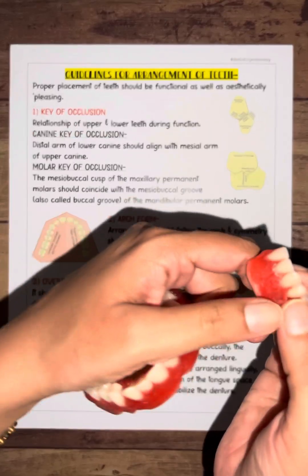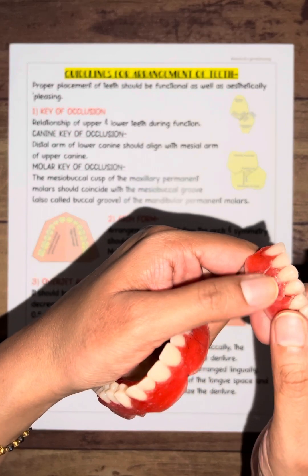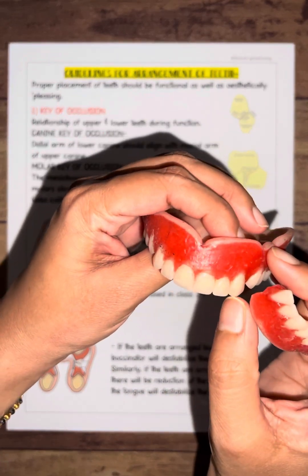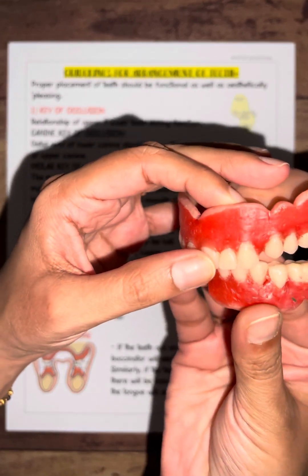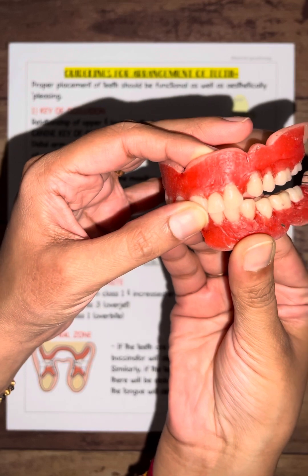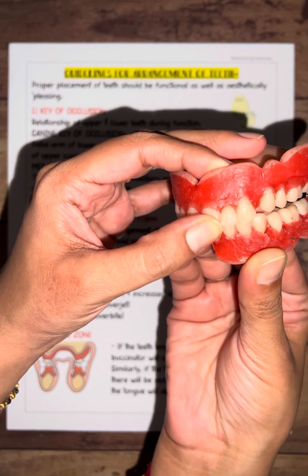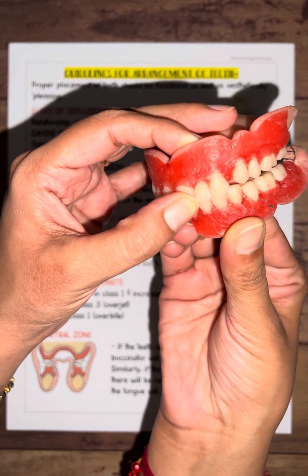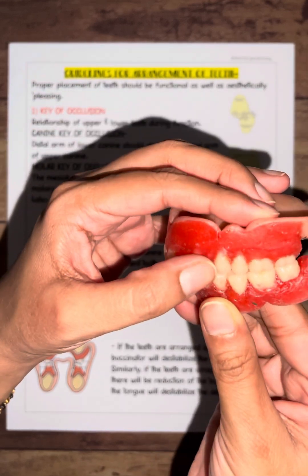The distal arm of your lower canine should align with the mesial arm of your upper canine. So the mesial of the upper is touching the distal of the lower. This is the relationship you need to follow for the canine.